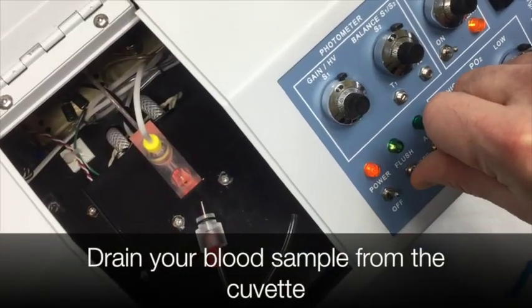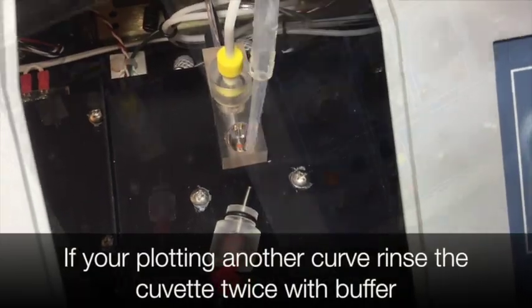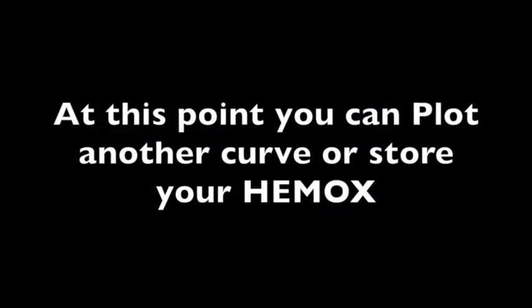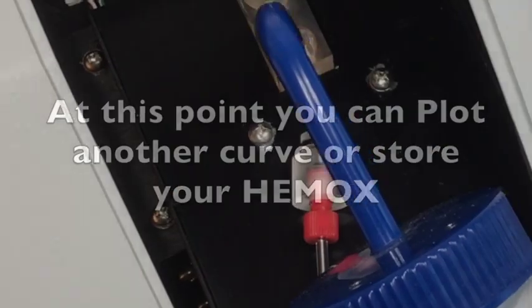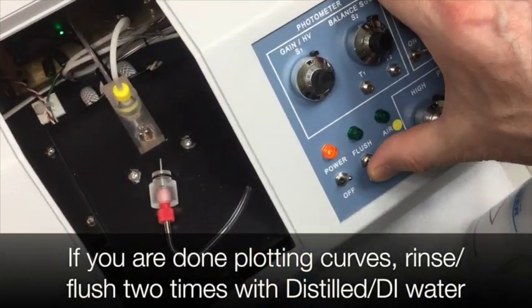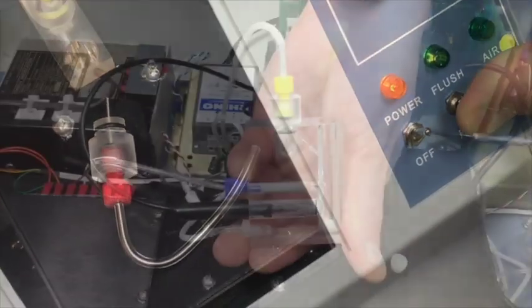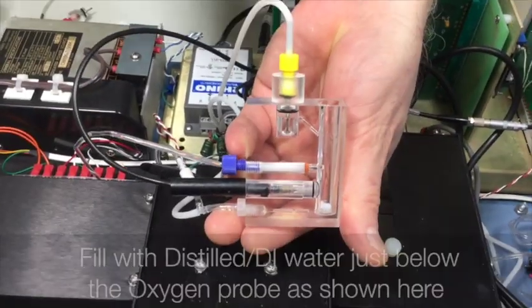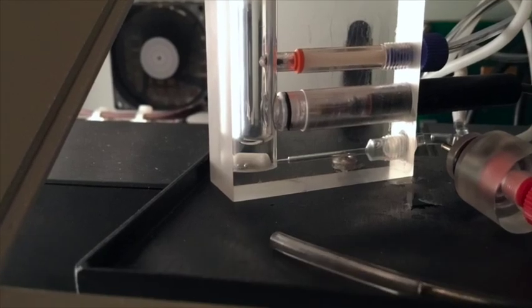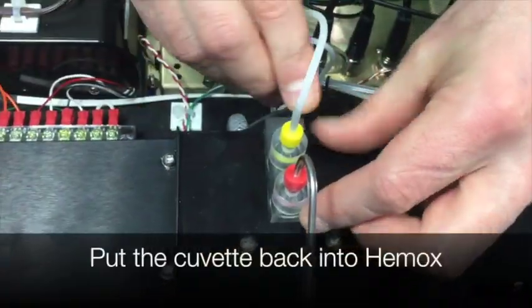Drain your blood sample from the cuvette. If you're plotting another curve, rinse the cuvette twice with buffer. At this point, you can plot another curve or store your Hemox. If you are done plotting the curves, rinse two times with distilled or DI water. Fill with distilled or DI water just below the oxygen probe as shown here. Put the red stopper back on the cuvette and put your cuvette back into your instrument, and you're done.